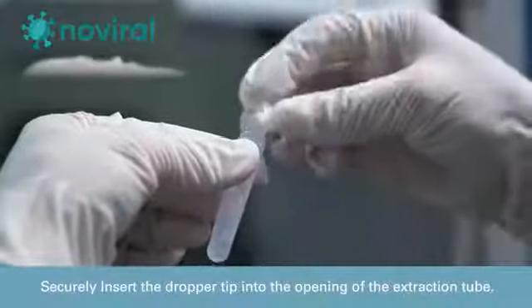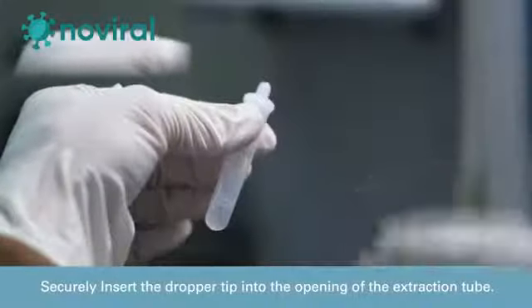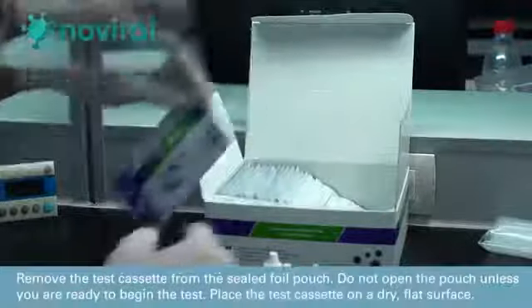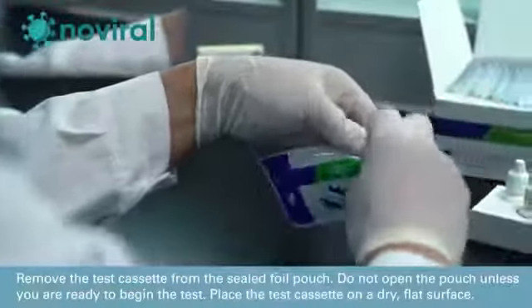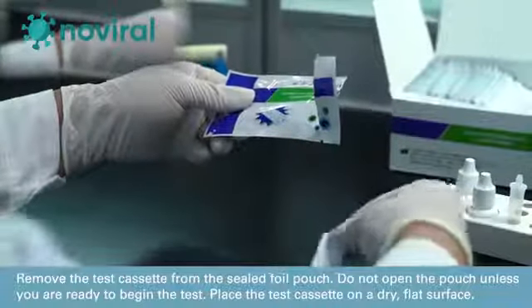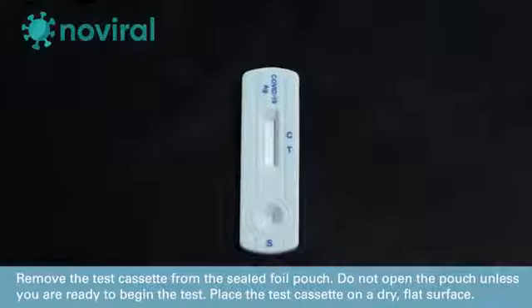Securely insert the dropper tip into the opening of the extraction tube. Remove the test cassette from the sealed foil pouch. Do not open the pouch unless you are ready to begin the test. Place the test cassette on a dry, flat surface.